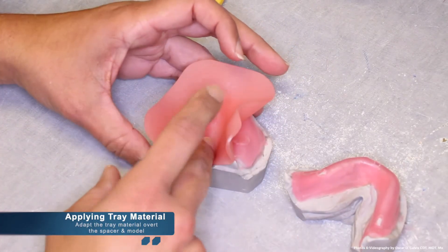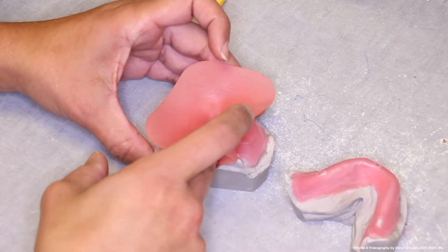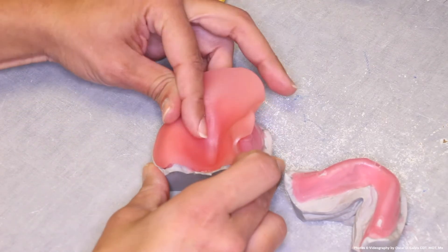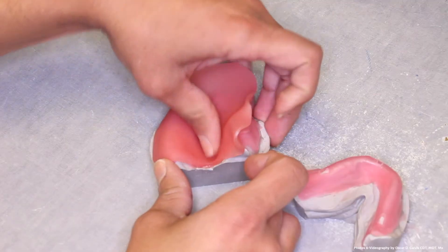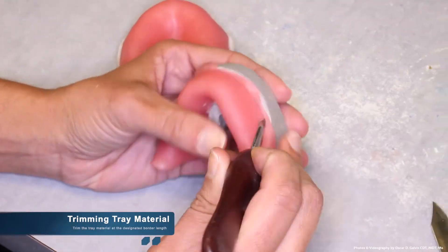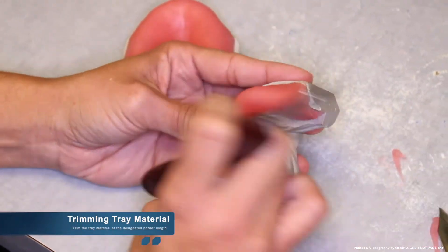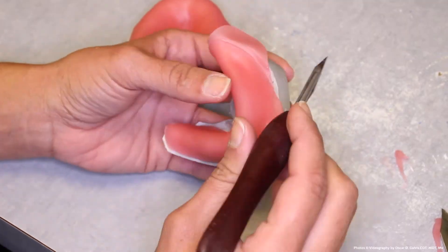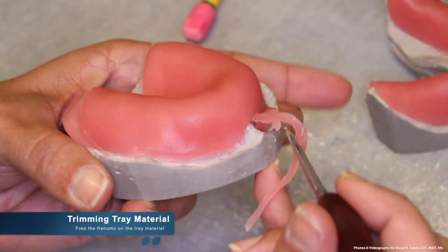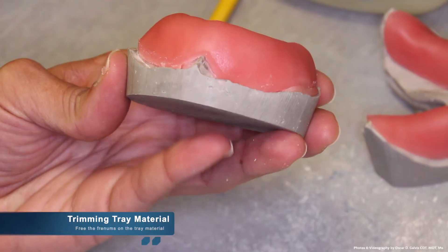The custom tray material being used in this video is a light cure material used very commonly today in many removable labs. It should be noted that other methods include vacuum form and self-cure acrylic. Once the custom tray material has been properly adapted, you can then trim the tray material while it's still soft. Be sure to trim the material at the designated border that you traced earlier in pencil. While trimming the tray material, also do not forget to free the freenums on the tray, just as you did in the spacer.